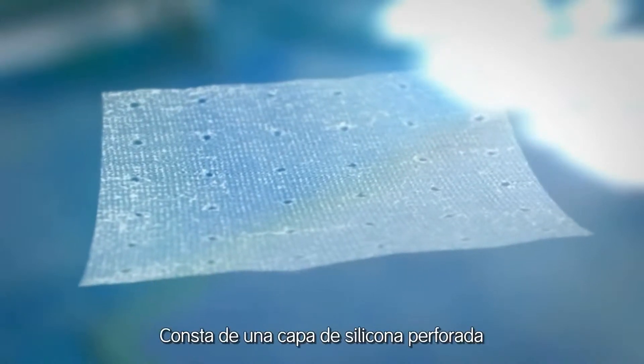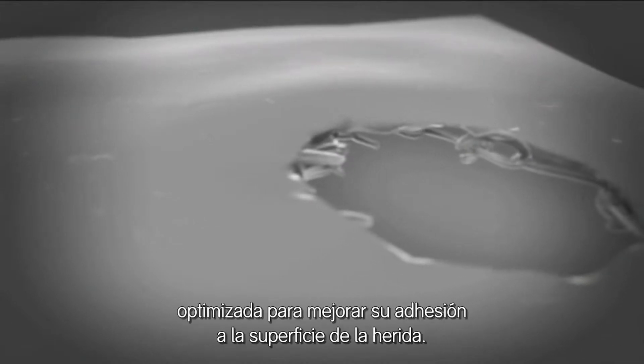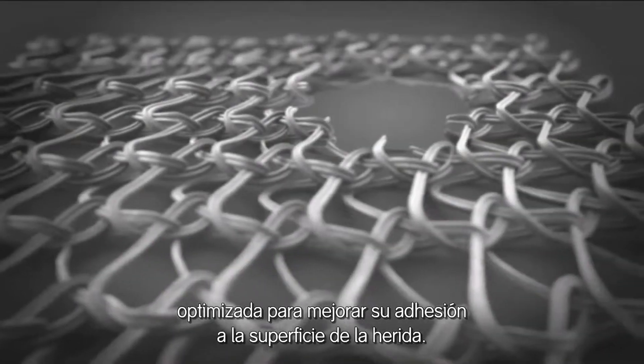It is constructed of a perforated silicone film bonded to a trifilament nylon matrix optimized to assist in adhesion to the wound surface.